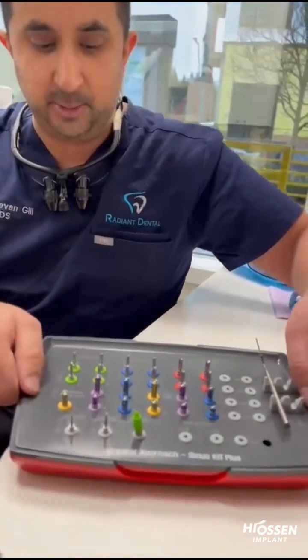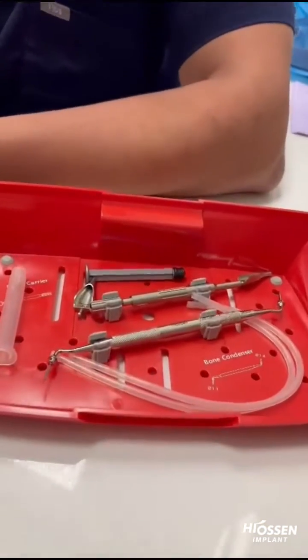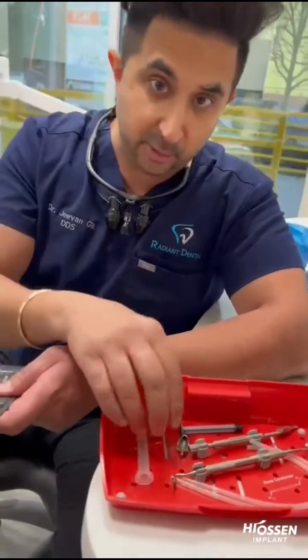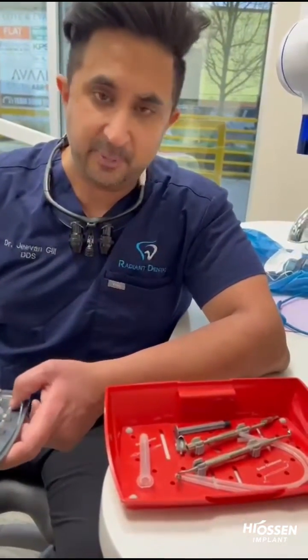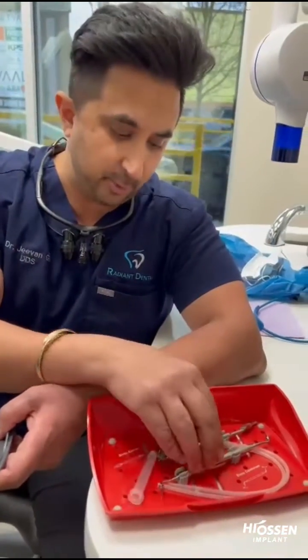After we've penetrated the sinus, you're going to have your hydraulic lifting part. You're going to have your tubing. You have to make sure that you never use the ejection parts incorrectly, and then once you have penetrated in, the next steps follow how they describe the CAST protocol. You've got your bone delivery parts and your bone condenser.